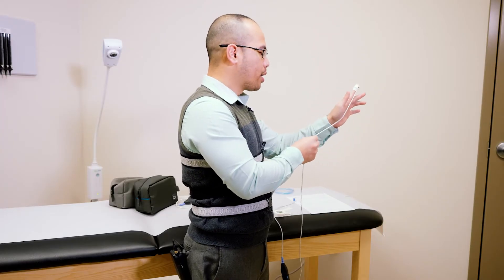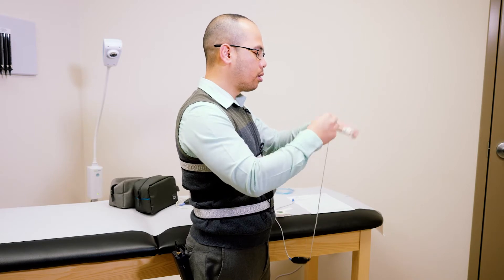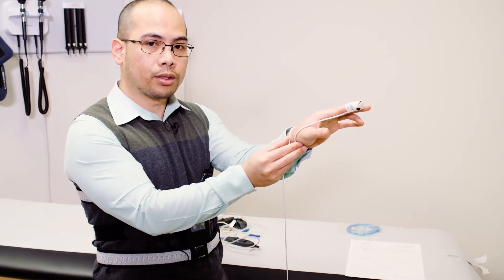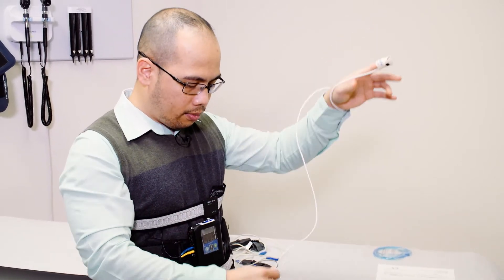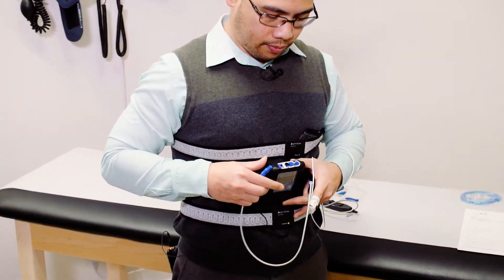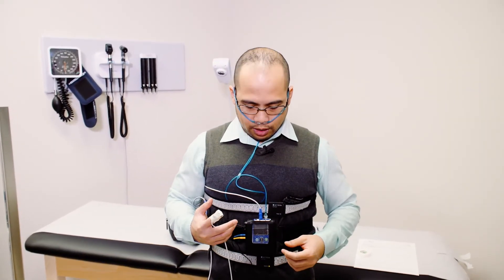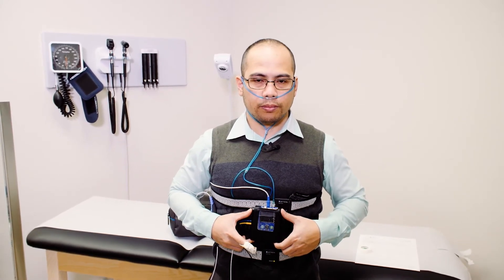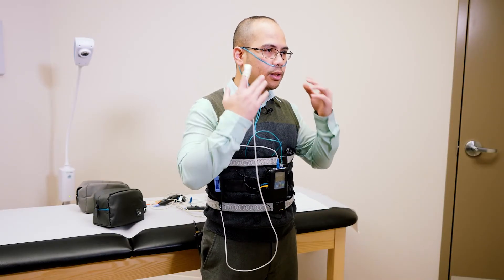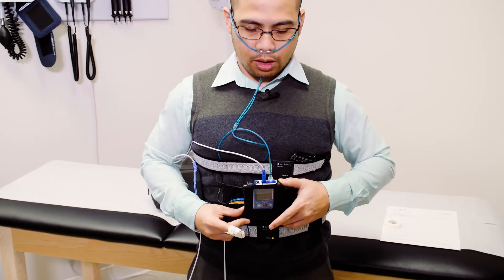The rest of the wires, wrap them around your wrist and place a tape over them so that they stay in place and are more stable. The other end of the sensor is inserted into the main recorder on top, sliding in place. At this point, you have placed the main recorder, the chest and belly sensors, the finger sensors, and the nasal cannula — all of which are attached to the main recorder on the side and on the top.